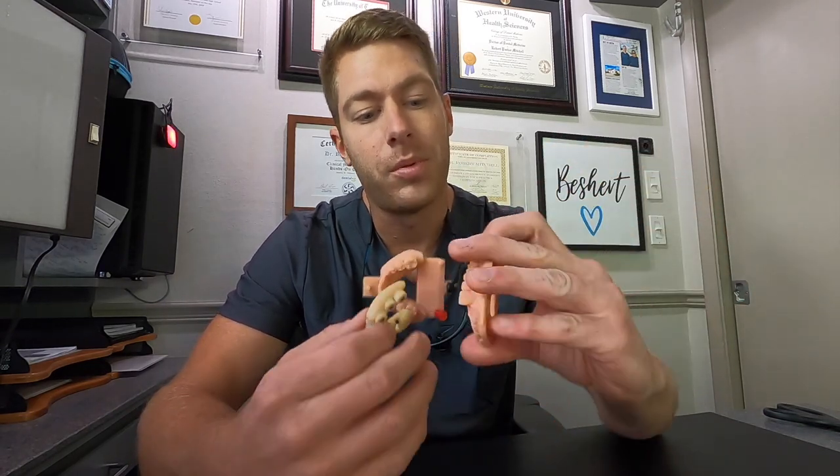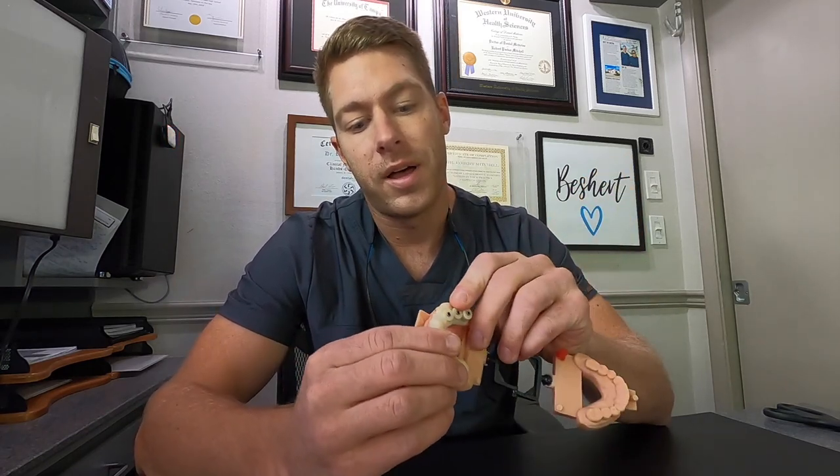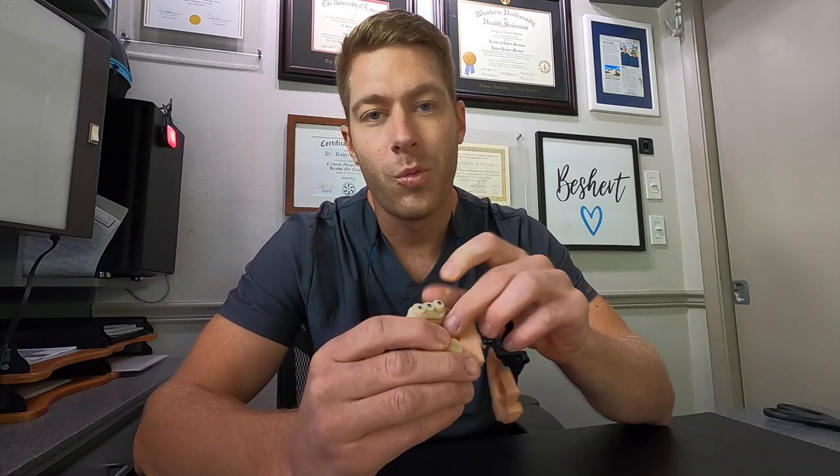In the next episode I'm going to show you how I actually place these implants and what I'll do is I'll place implants on this 3D printed model so that you have an idea of what I do daily.